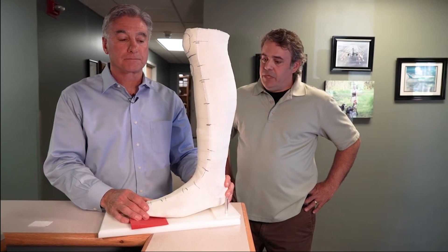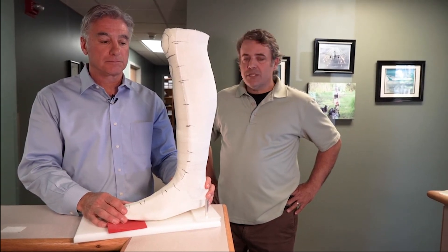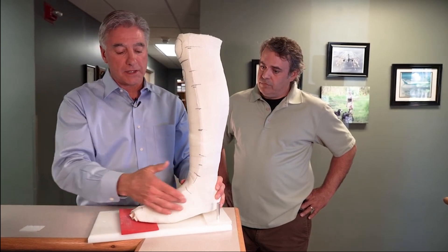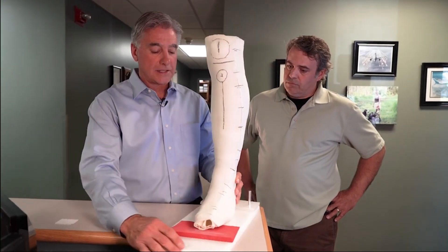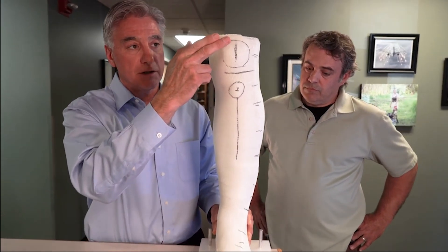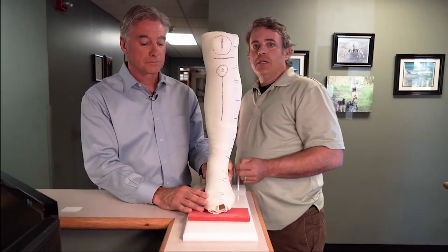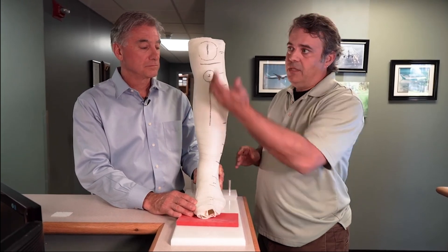Now that we've gotten a cast, we need to go ahead and do an evaluation. It's one thing to take a cast — it's another thing to make sure you actually have a cast that's correct to work with. Generally I check the dorsiflexion angle to make sure I have the proper heel height, and that set up on the proper heel height, I can maintain my 90 degree angle. I also check my third rocker to make sure that's in place. I view the cast from the anterior to make sure I have proper alignment in the AP. We also want to make sure that a plumb bob through the center of the knee will drop down between the first and second toe. One of the things Dave did that's really good is he left a solid anterior reference, so we have no questions about where the line of progression is for the limb — when we determine the inversion and eversion placement of the foot in fabrication, that's going to be invaluable.